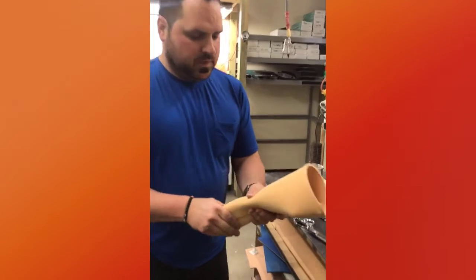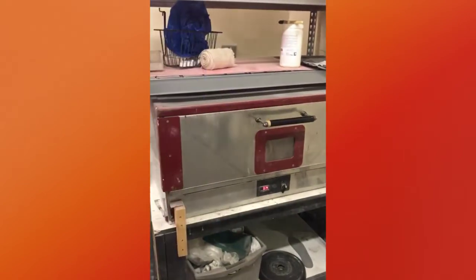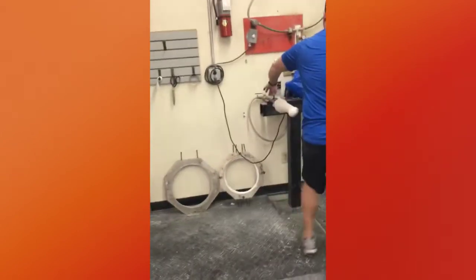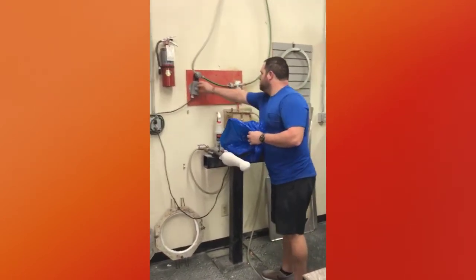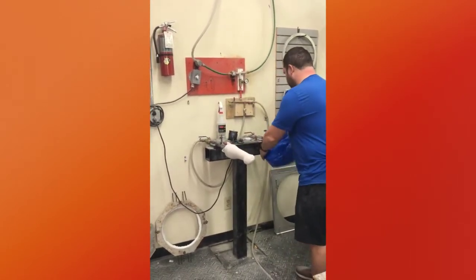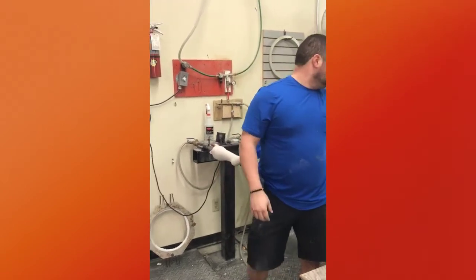So this will be the first part of it. We'll throw it in the oven here, heat it up — about 15, 20 seconds. And we'll do that.